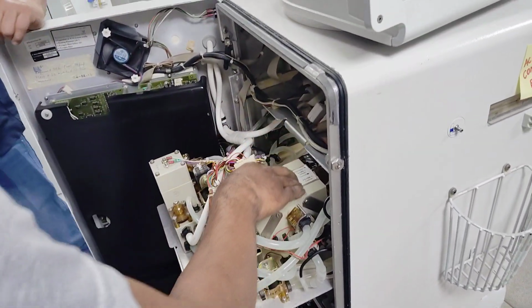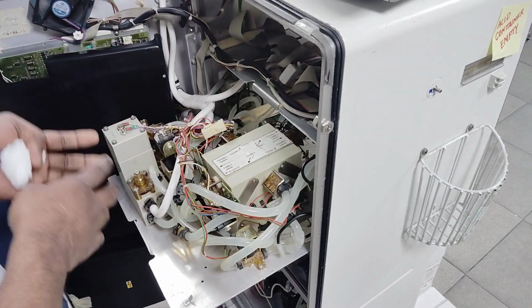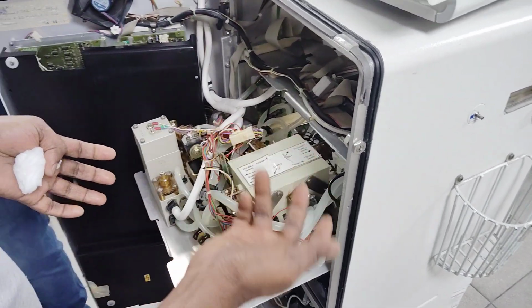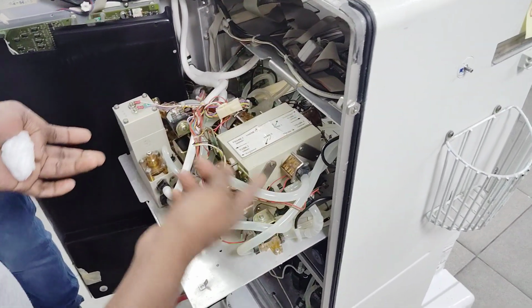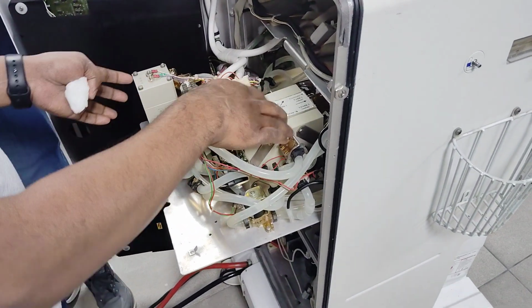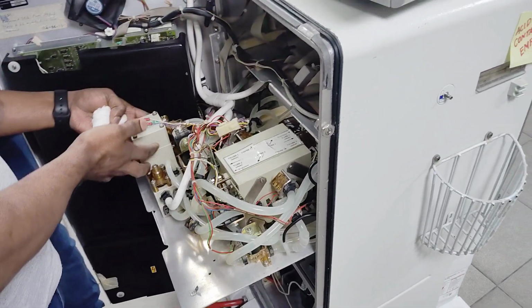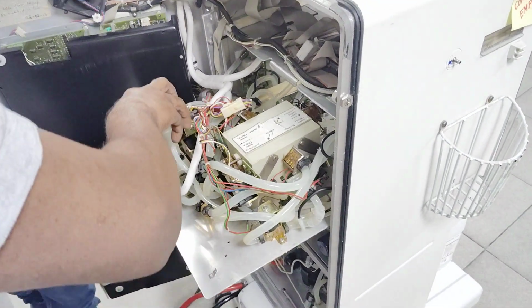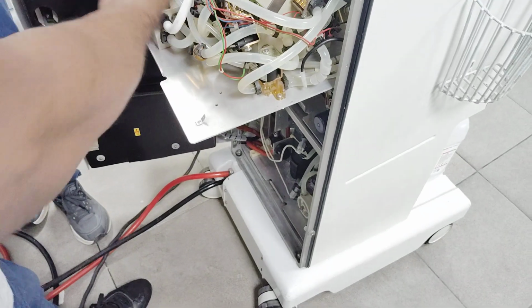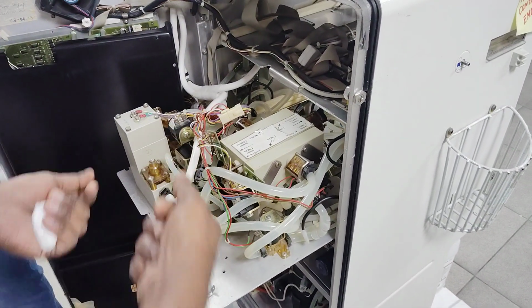So if the air is coming inside the loop while running, there will be a disturbance. Suppose the machine is running in the dialysis, the flow disturbance will come, dialysis disturbance will come. There are many other problems it can create. So what it's trying to do is suck the air through some part and there will be some water. Then the air will go down and it's trying to prepare and send the good water over there. Okay. So wherever air tries to build up, it's trying to take it.